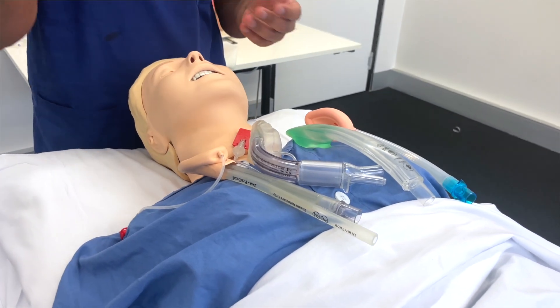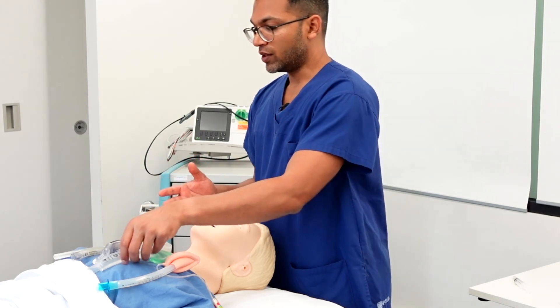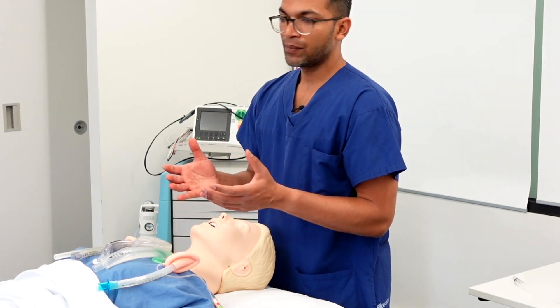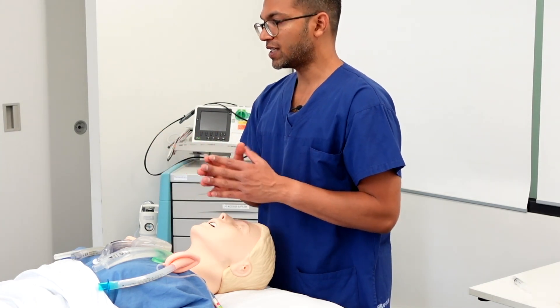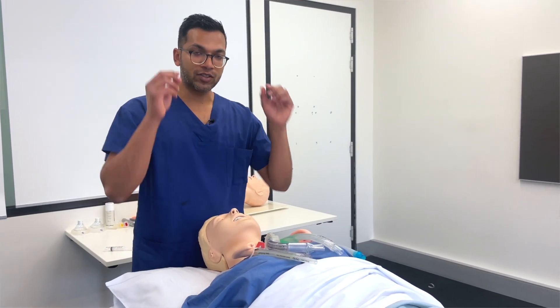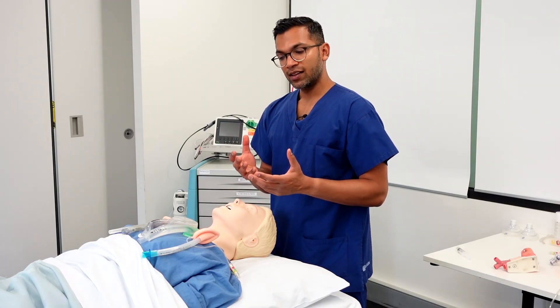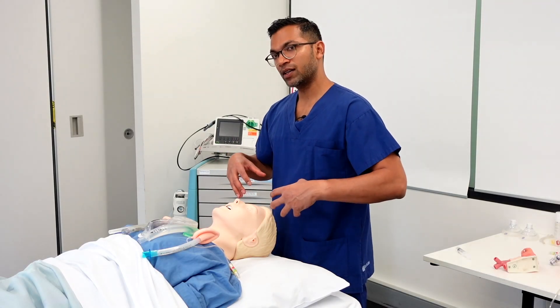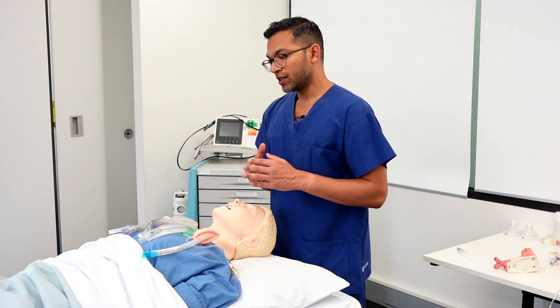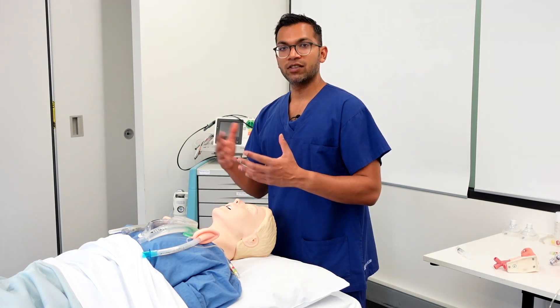The final thing that makes second generation LMAs potentially more useful than a classic LMA is that they can generate higher pressures for ventilation. The classic LMA achieves maybe 20 to 30 centimeters of water maximum pressure for insufflation, whereas these devices can potentially achieve above that — sometimes up to a total of 60 centimeters of water. With the iGel, Supreme, and ProSeal, you'll get higher insufflating pressures, quoted anywhere from 40 up to 60 centimeters of water.